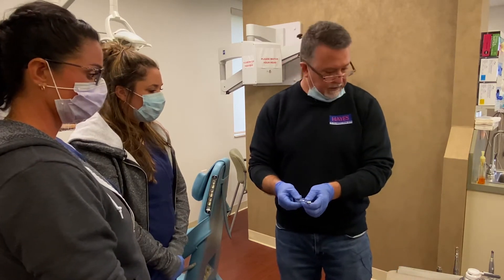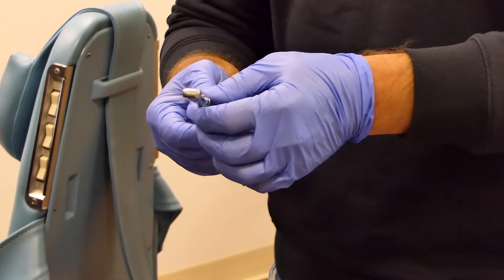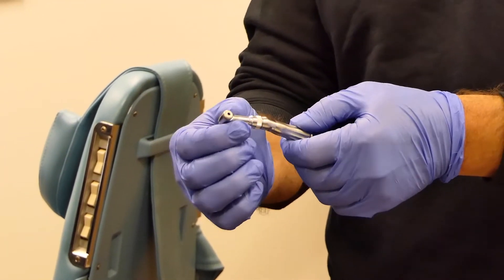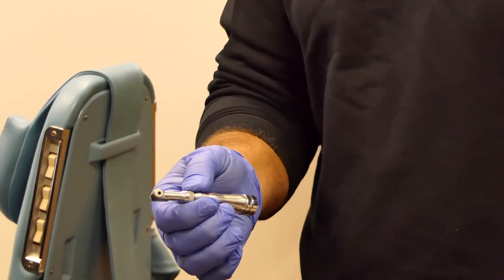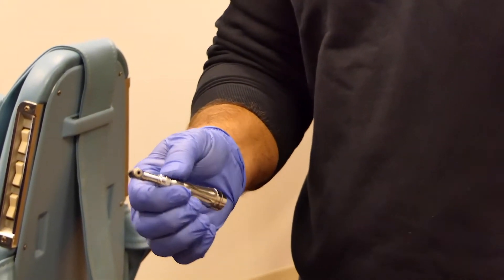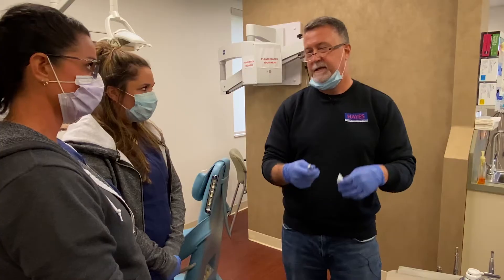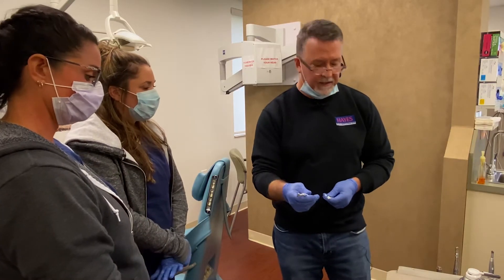One of the attachments used on slow speeds is a Star motor-to-angle with a swing latch head. There's not much to do here either — wipe it down with the two-by-two with rubbing alcohol, bag it, sterilize it, and make sure to get through the drying cycles.